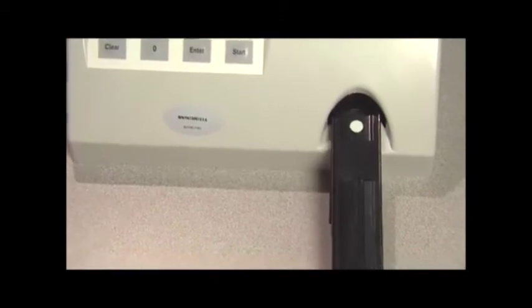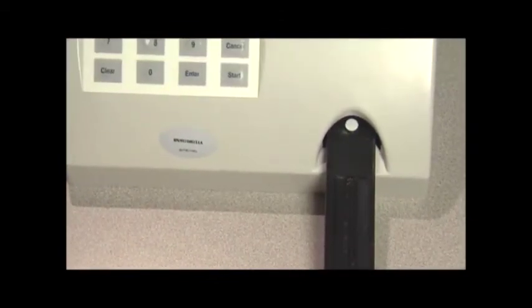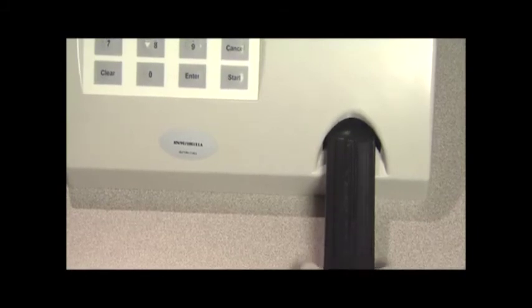Once it's dry, place the strip holder on the strip holder mount with the white calibration circle facing up and positioned toward the analyzer.